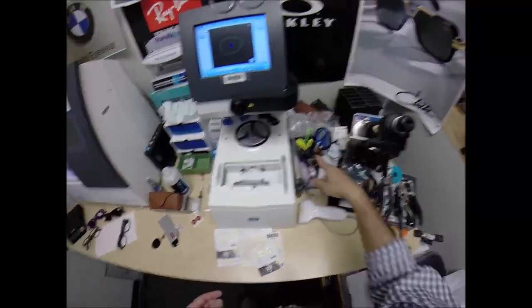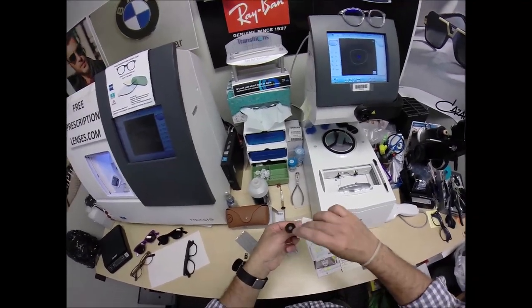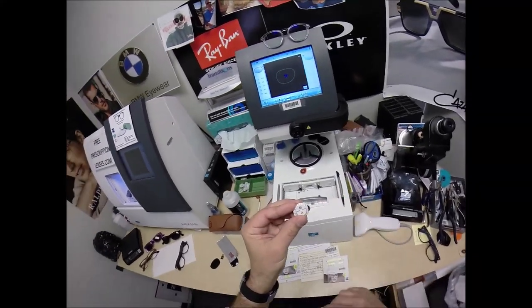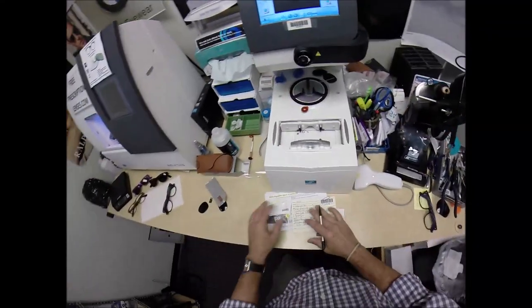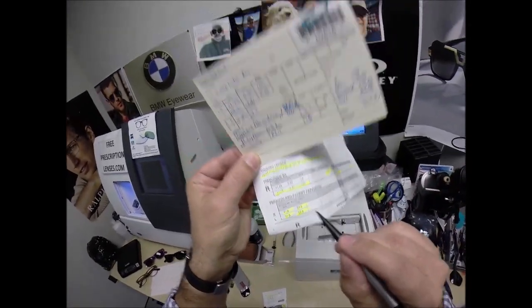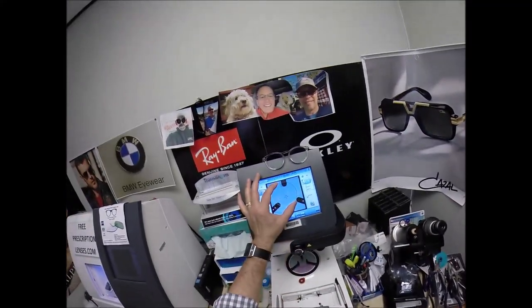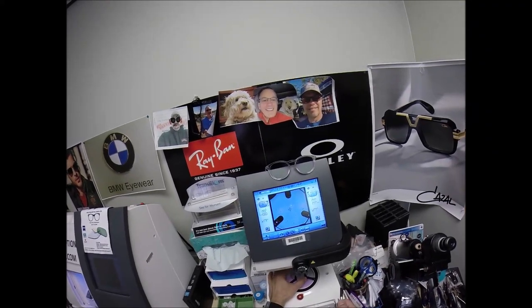Let me recap. This is a block — I need to attach this to your lens while it is cutting. I need two double-sided adhesive stickers. The black side is the sticky side. On the back is a little silver button that is a magnet. I'm going to move to the next screen and enter your pupillary distance of 31 for each eye, the seg height of 23 millimeters, and change the layout screen from single vision to progressive.